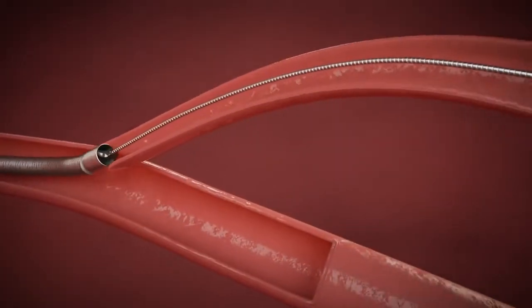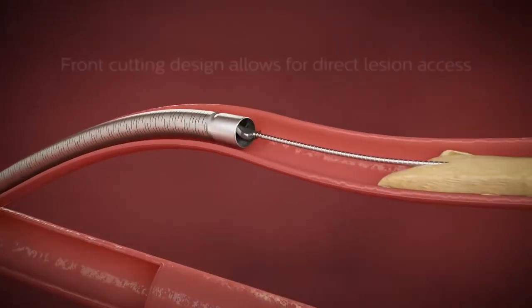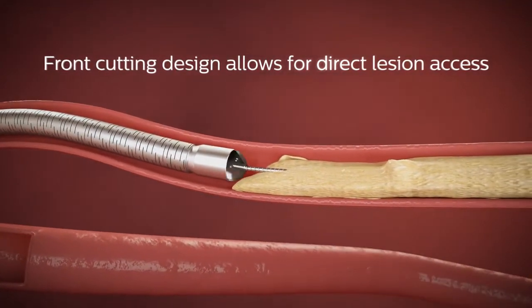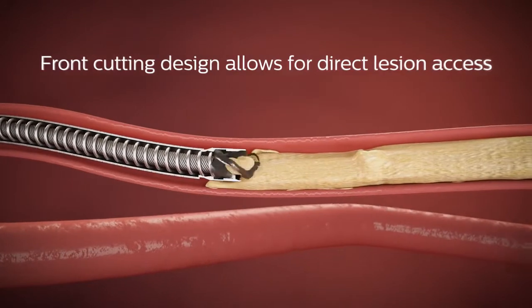Because the cutting element is located on the distal end of the catheter, the Phoenix can immediately begin treating highly stenosed lesions without having to first pass a nose cone.